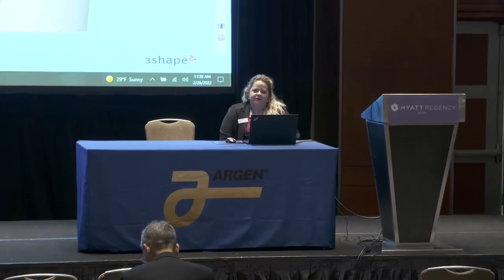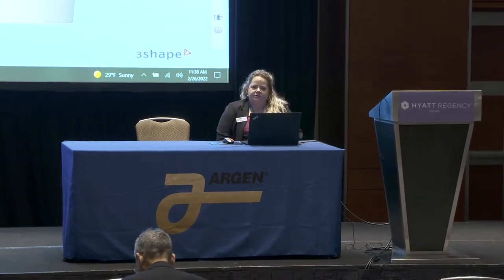Hi everyone, thanks for coming. We're going to start off with the denture design process, going through all the tools and functions for designing dentures on a single arch. Then we'll dive into abutment split files, learning strategies to successfully design an abutment and a crown at the same time so they seat the first time, saving you time and workflow in your laboratory.